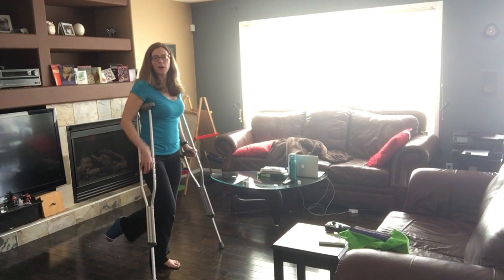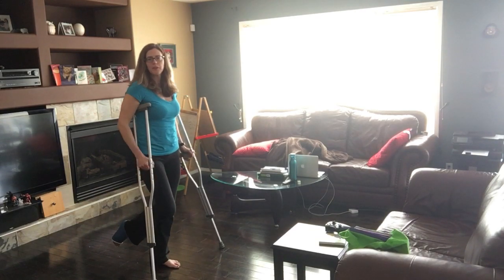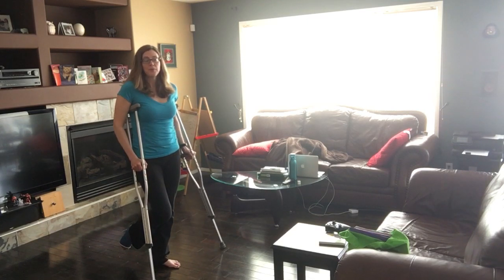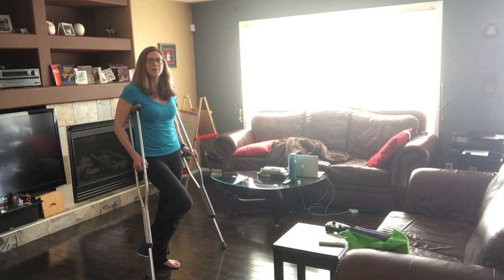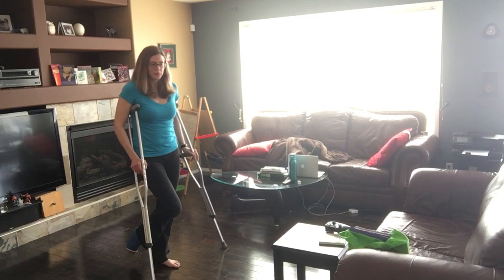When I'm walking, I hold the leg up and behind me. The top thigh part of my leg is pretty relaxed and my cast is just held out behind me. Now that I'm a week post-op, it's actually feeling a lot better. The first week after surgery or an injury it's harder to be up because it's not comfortable — the foot likes to be elevated. But I'm getting to the point where I can be up a little bit more. You've got to listen to your body and do what works for you.